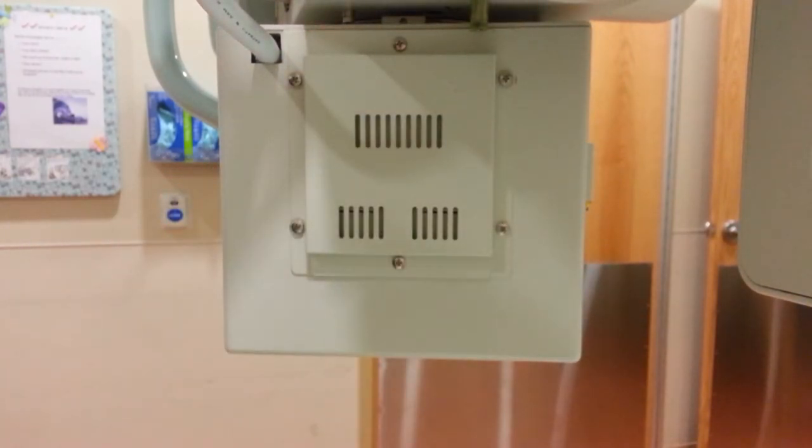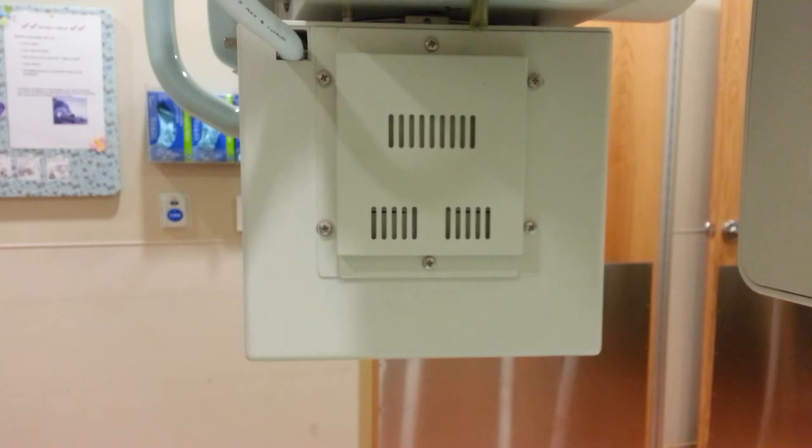Okay, that's good to go right there. This is on a Shimadzu Rad Speed machine. The collimator is type R30H. I'm going to turn the power back on.